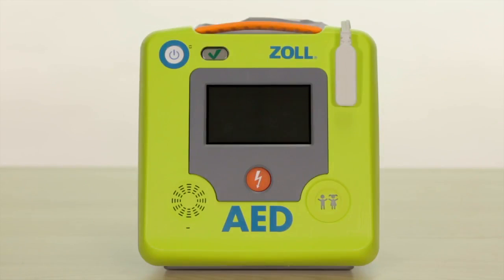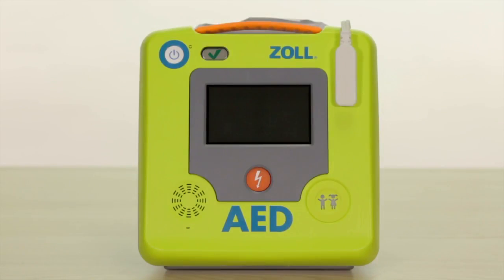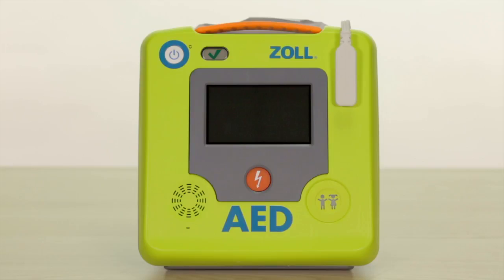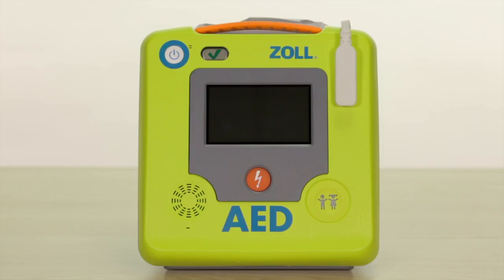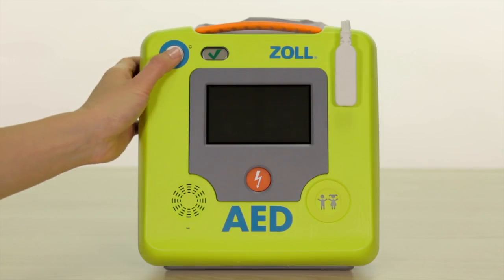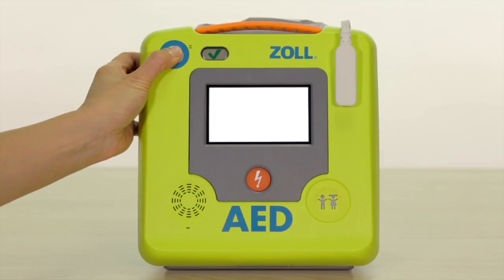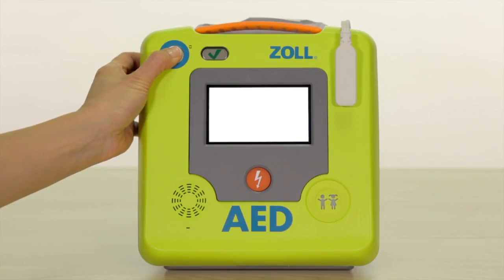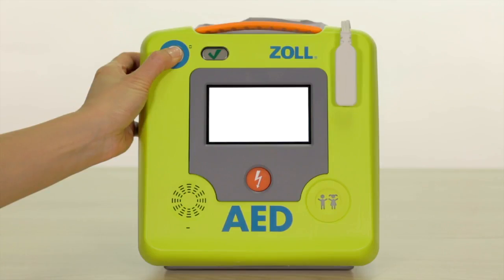To access touchscreen configuration options you will need to place the AED3 in configuration or non-clinical mode. You can do this by simply holding the on button down for about 7 to 10 seconds. You should hear a click and the AED3 will display a blue ZOL logo screen.